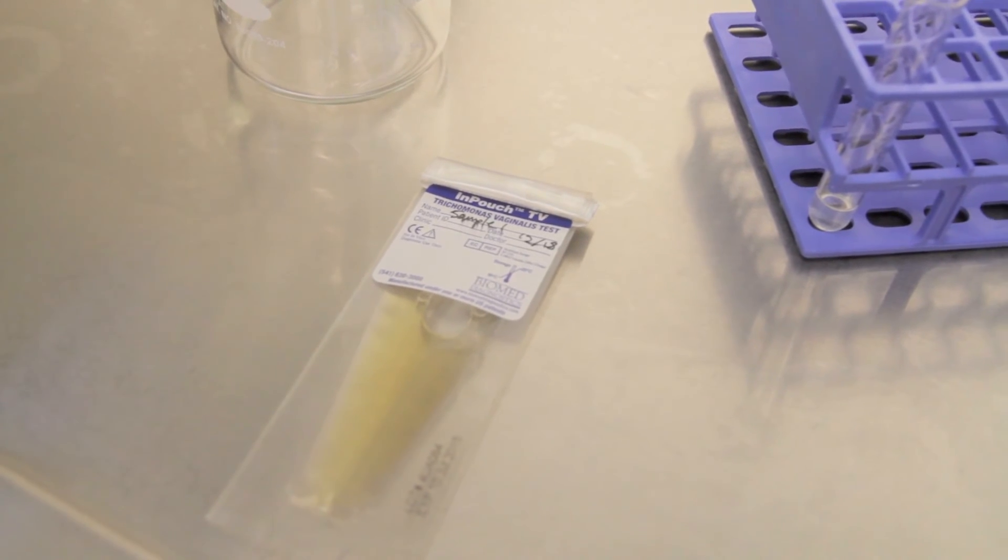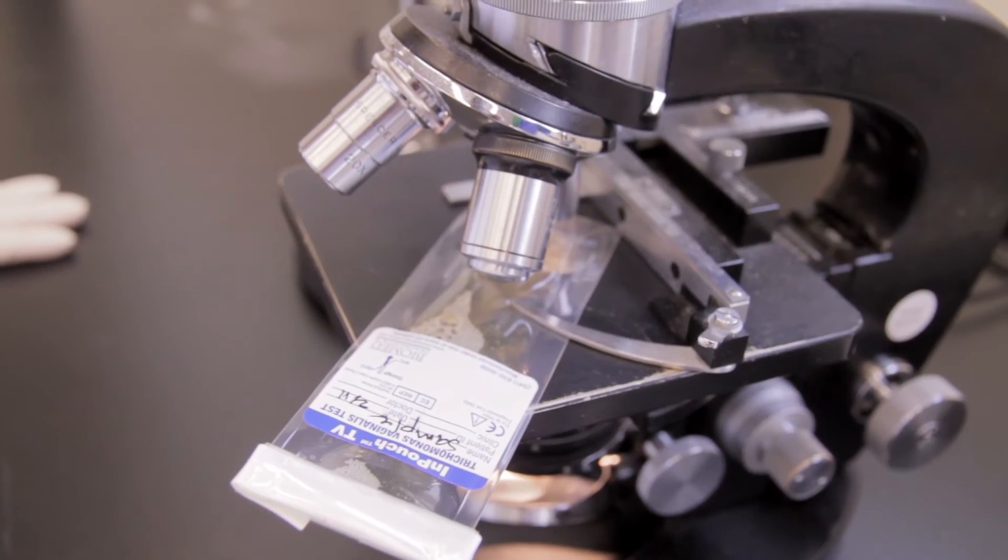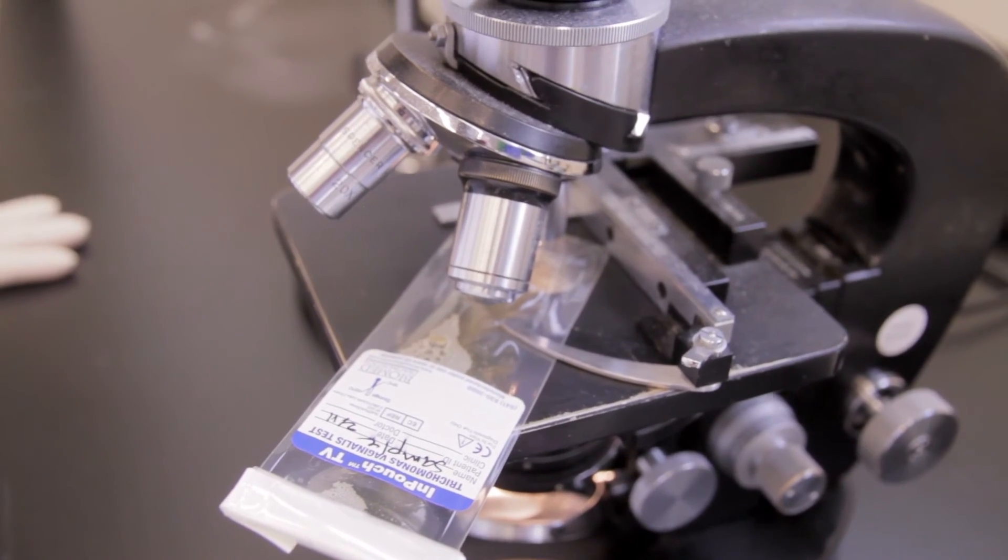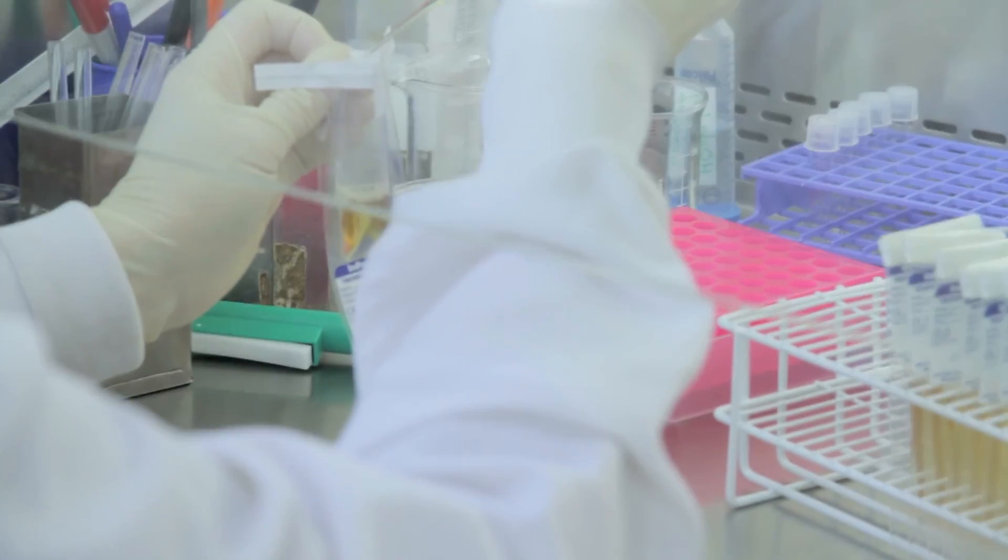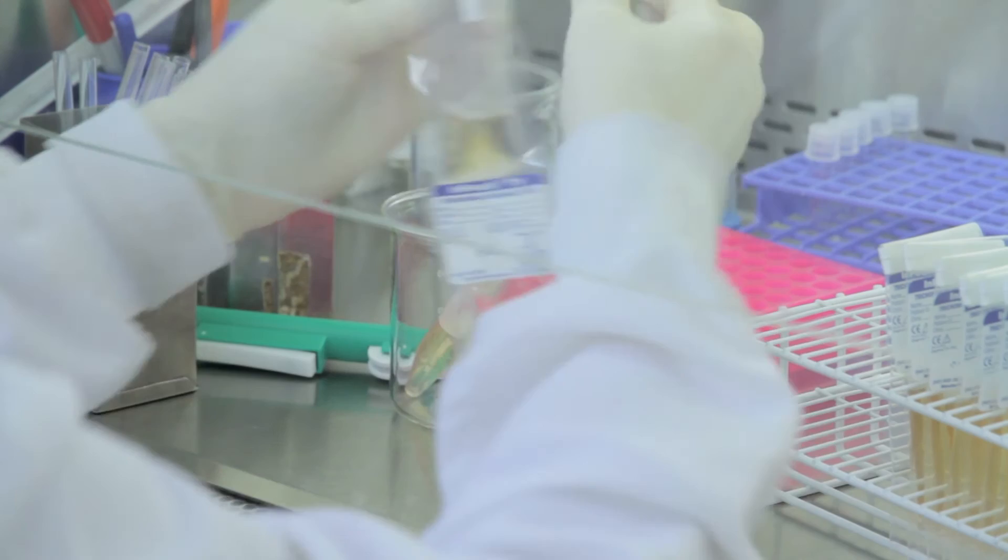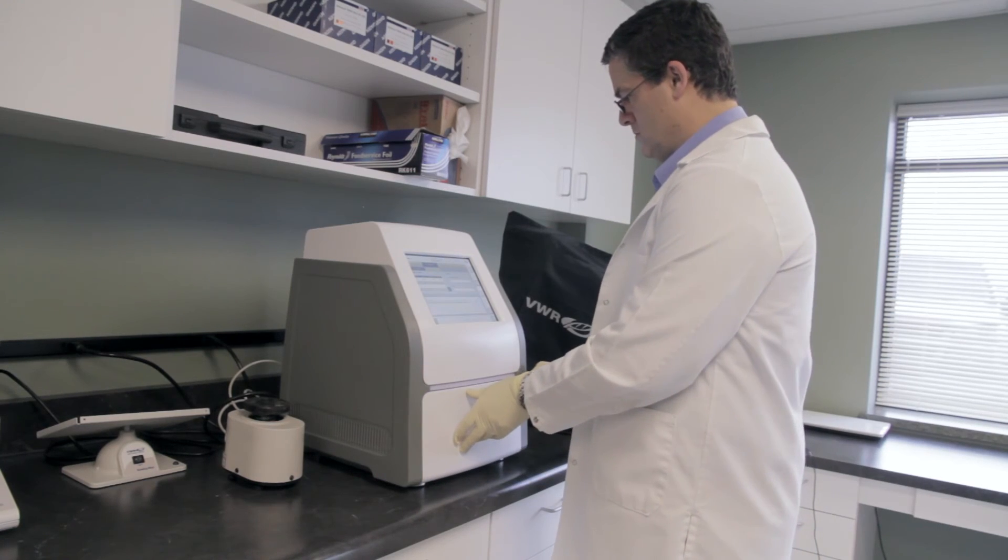This InPouch design also provides direct sample view through microscopy and eliminates the need for wet mount slides. Additionally, the InPouch TV device is a perfect sampling device for the extraction of Trichomonas DNA for PCR testing.